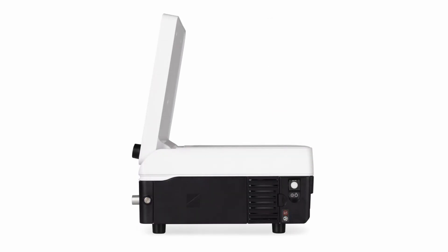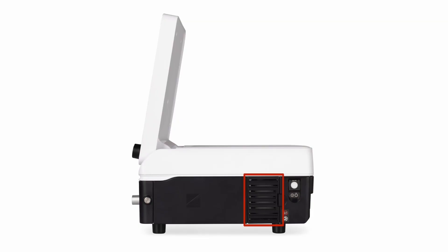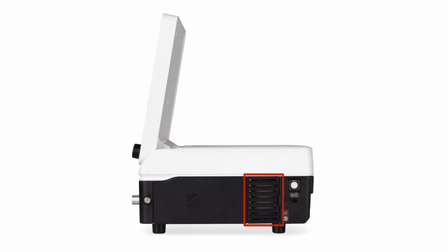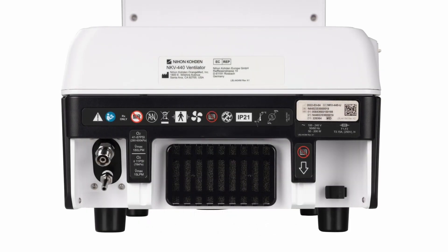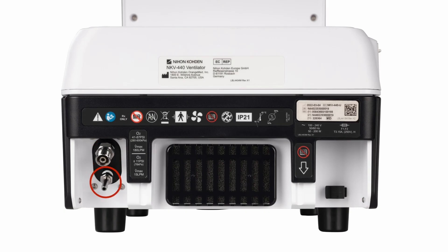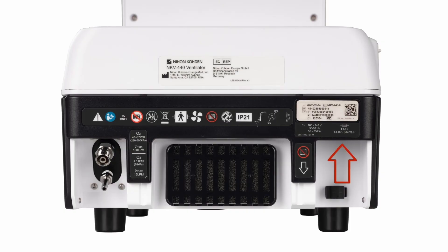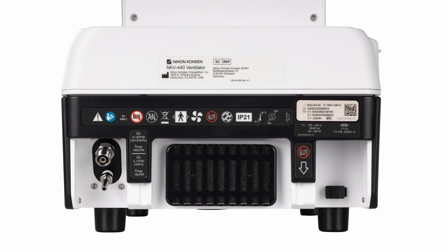On the right side of the ventilator is the power on/off switch and the air intake for the blower. Air going to the internal blower first passes through a dust filter, then through a HEPA filter prior to entering the blower. The dust filter and HEPA filter are situated behind the air inlet cover. At the rear of the ventilator are the high pressure and low pressure oxygen inlet ports, the cover for the cooling fan filter, and the AC power cord connector. Since the NKV 440 incorporates a built-in blower to provide the air source, there is no air inlet port.